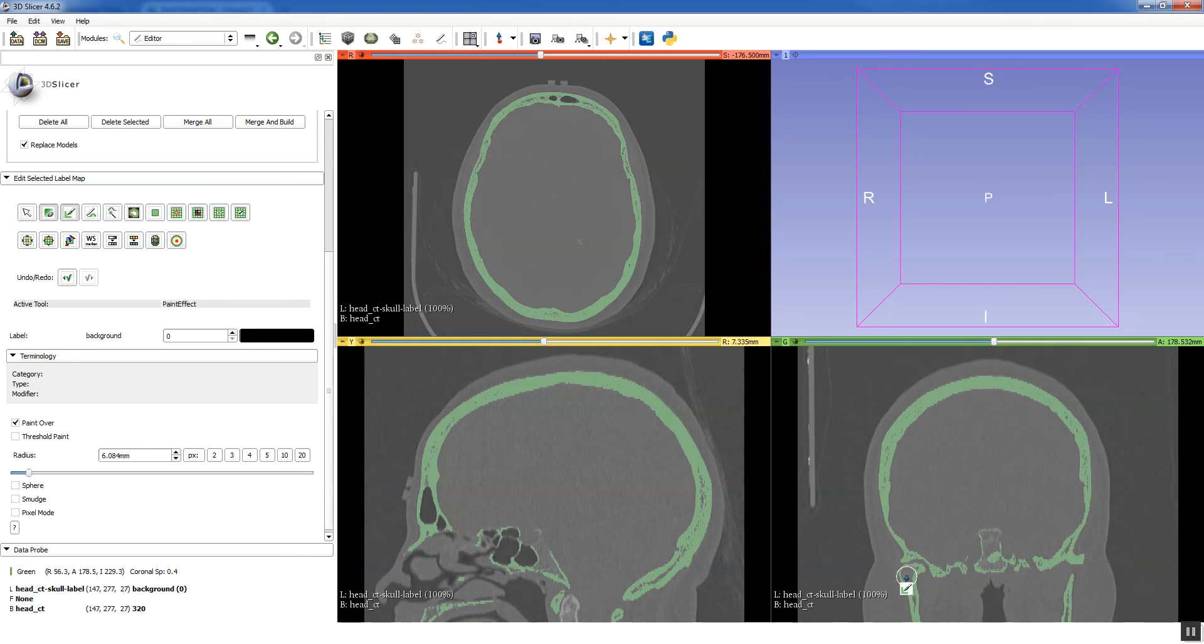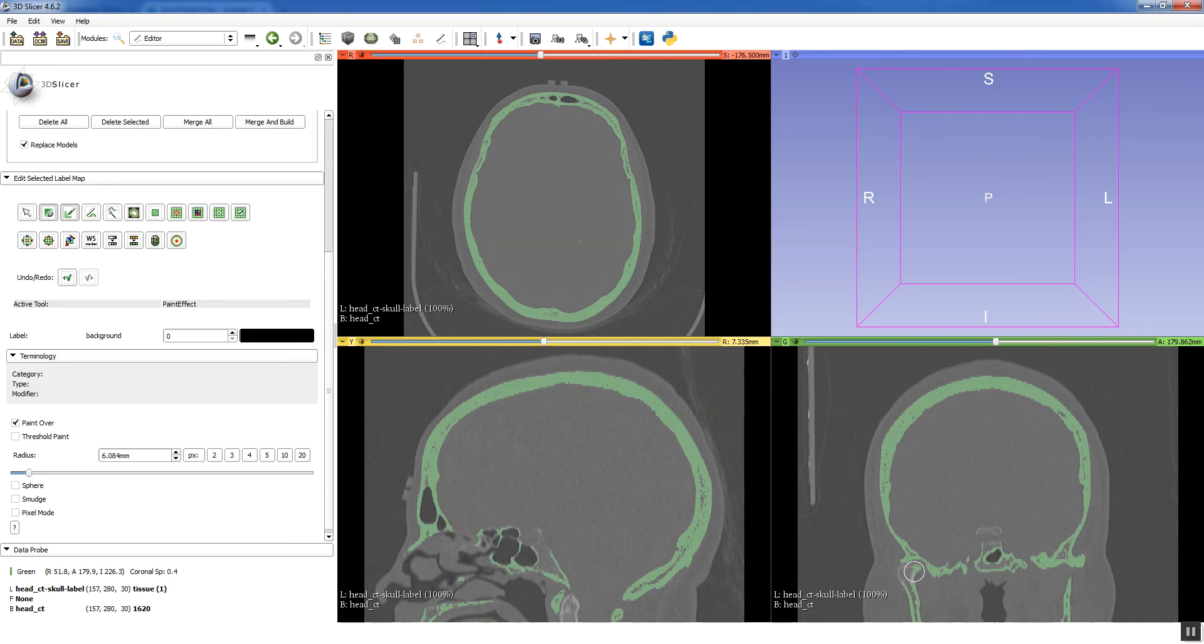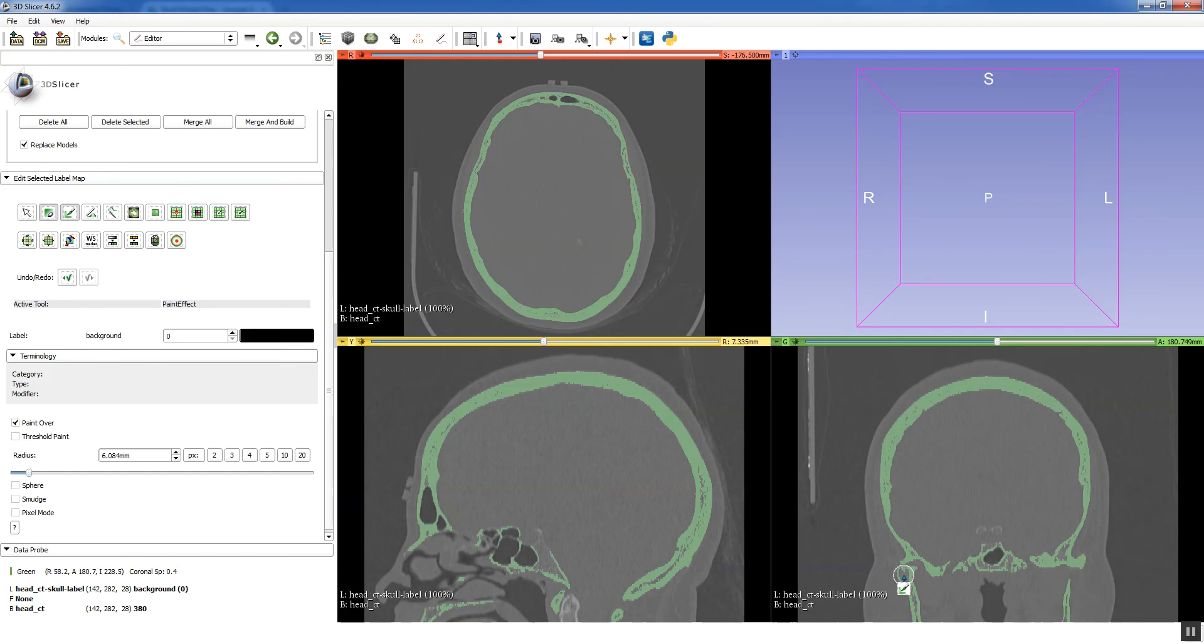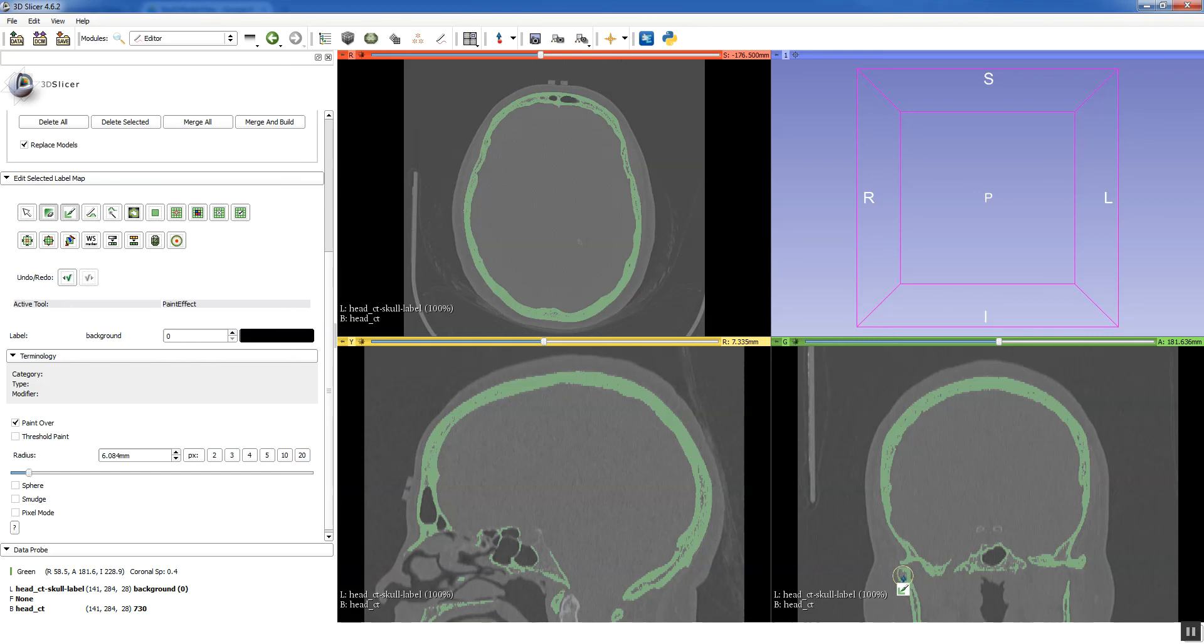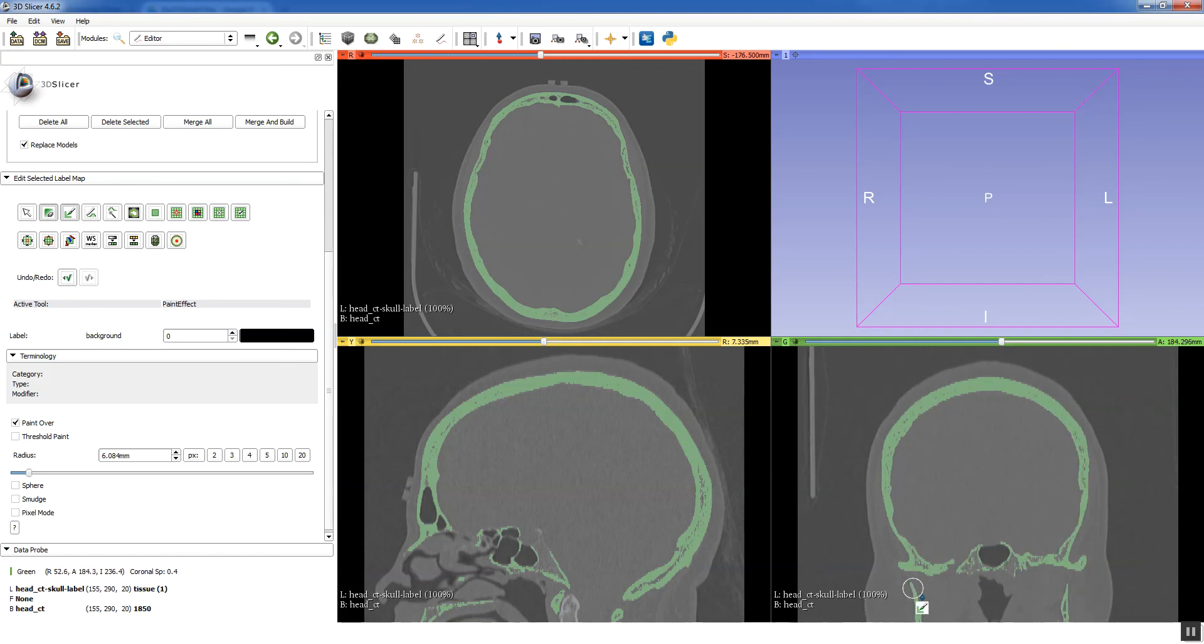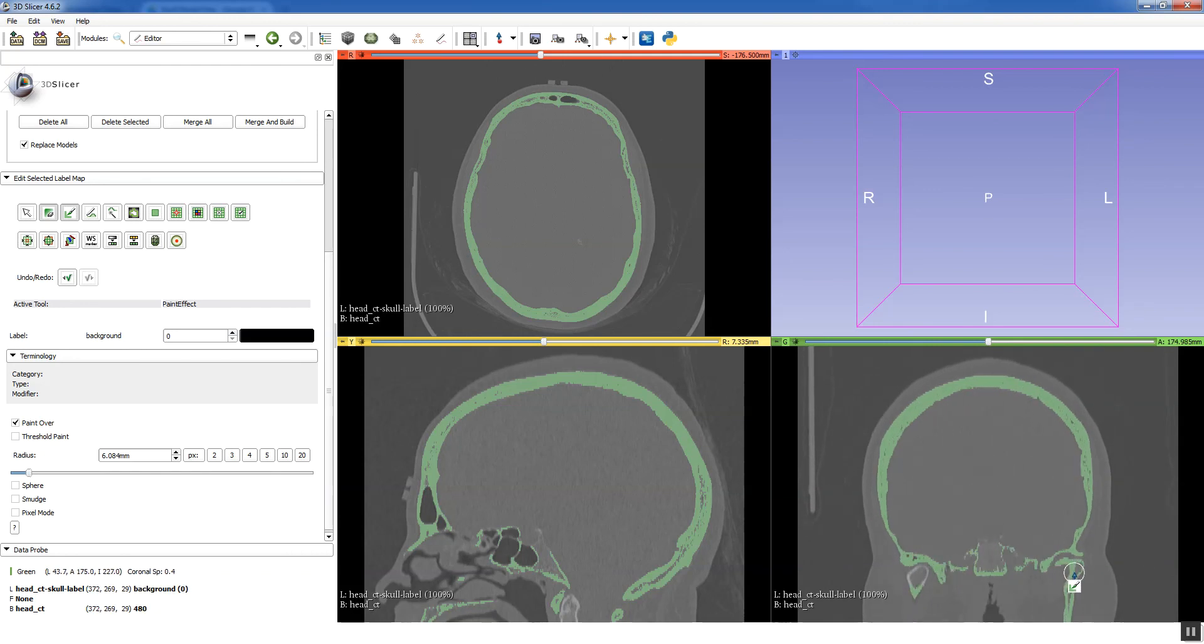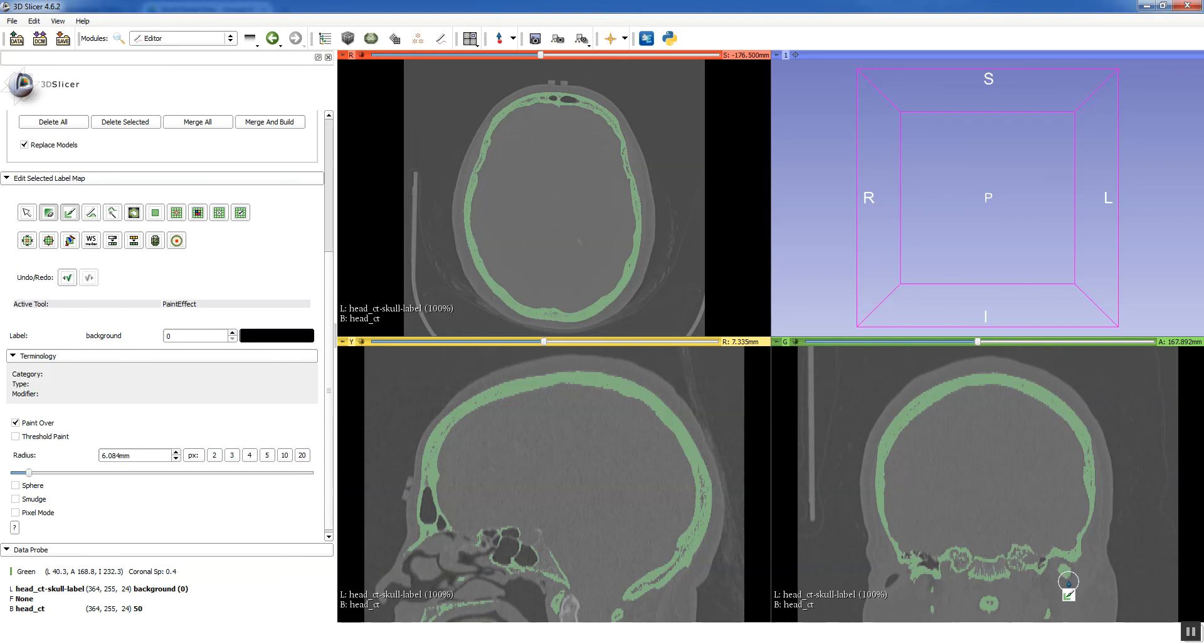So I've found that over disconnecting a little bit up front tends to save you some time. But it's not uncommon that you're scrolling back and forth trying to find that connection between two different structures that you're trying to disconnect. And it can be kind of a pain. And as you can tell, segmentation is one of the more time consuming processes for 3D printing. Especially if you're trying to make a bunch of different structures. The fortunate thing is that it's not very difficult. So you can do it and not really have to be that focused.